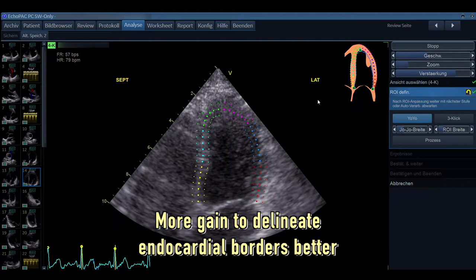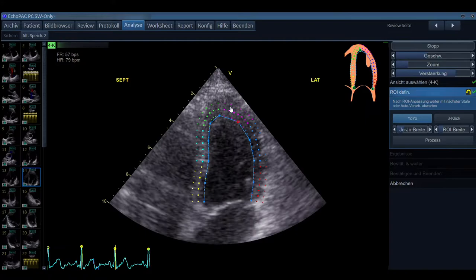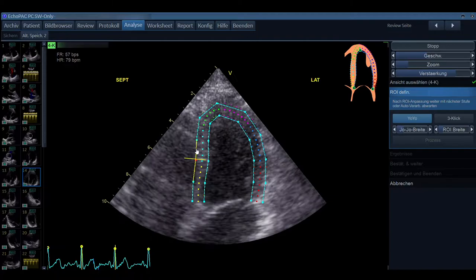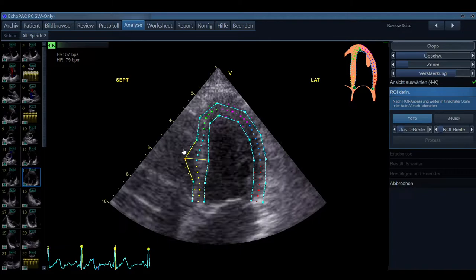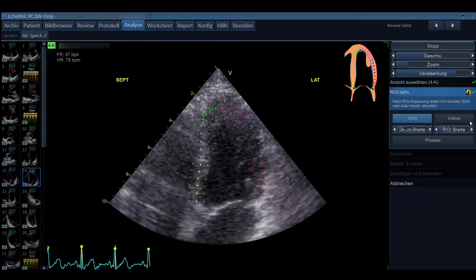So there are certain pitfalls. Not only the ROI per se is important, but also how you can see, for example, hypertrophy. If there is a hypertrophied region, you can use this part on the outside to even trace the myocardium better. But always be aware that you want to keep it in a range where it is okay. You can make this ROI tremendously huge.